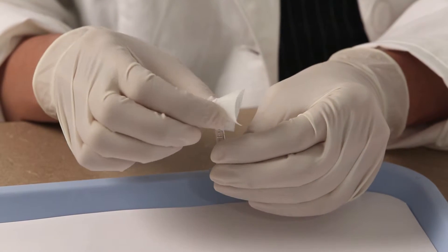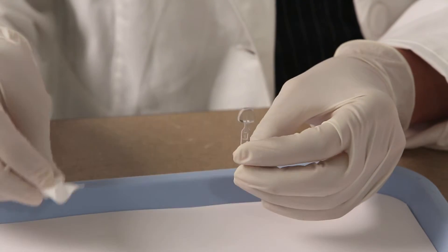Immediately after use, wipe the template with an alcohol wipe to prevent composite buildup.